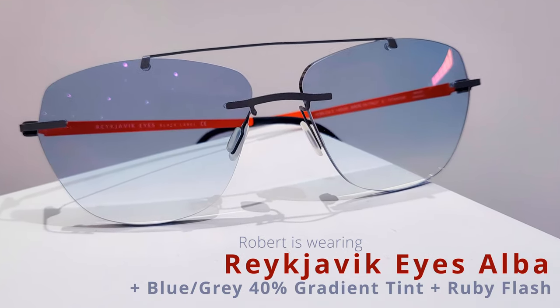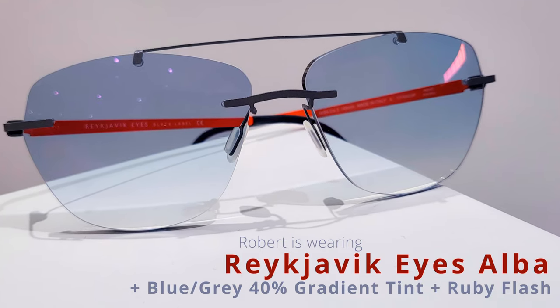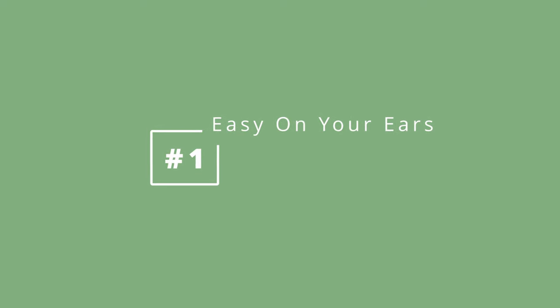For most of us glasses just need a little bit of a tweak here and there. Today I'm going to be demonstrating some absolutely essential types of adjustments to help you achieve an amazing fit. We're going to start with the simplest and most common kind of adjustment, which is to do with the temple tips and the mastoid. This region behind the back of our ear is one of the most sensitive parts of the body, so this is a really crucial adjustment.